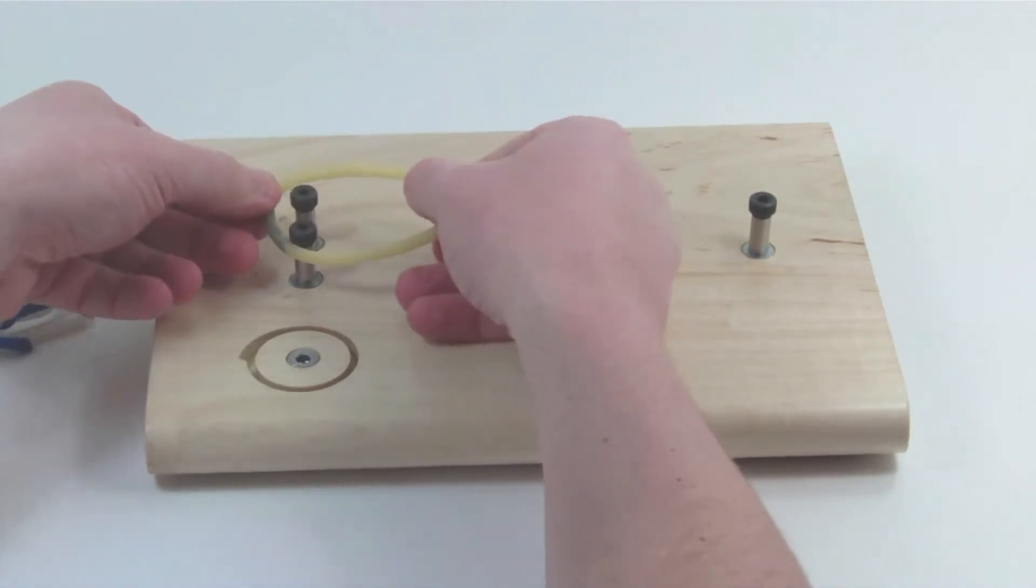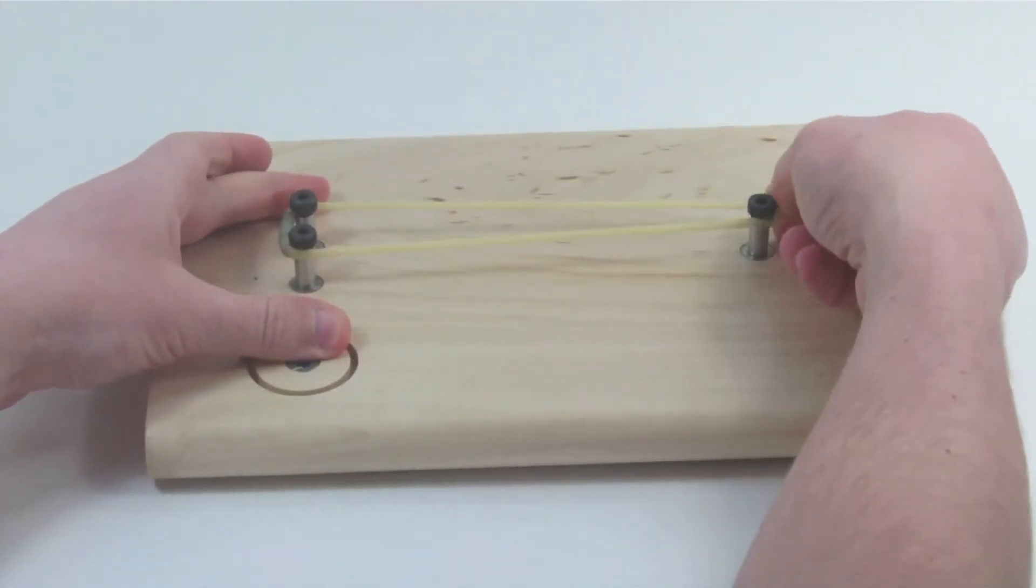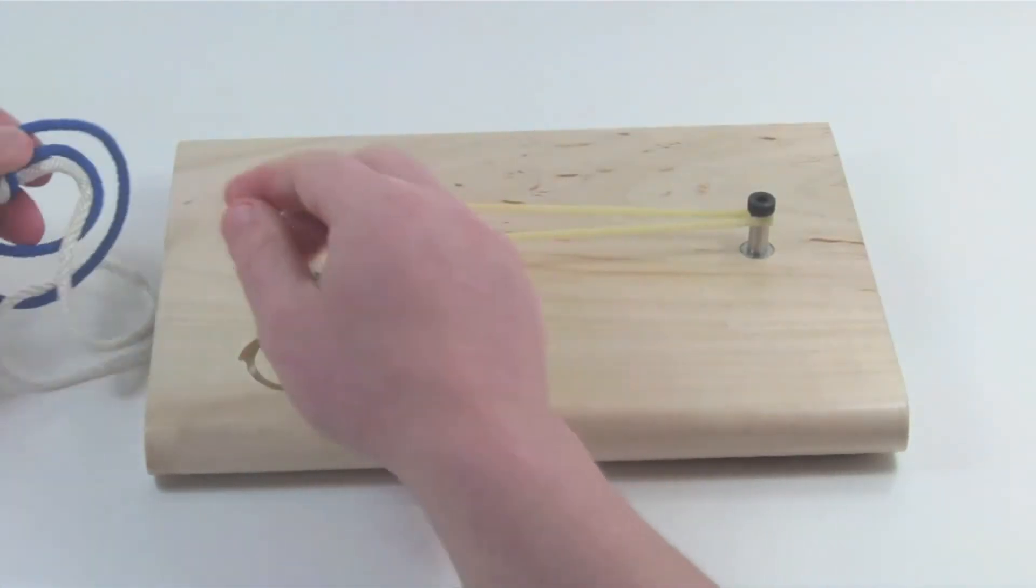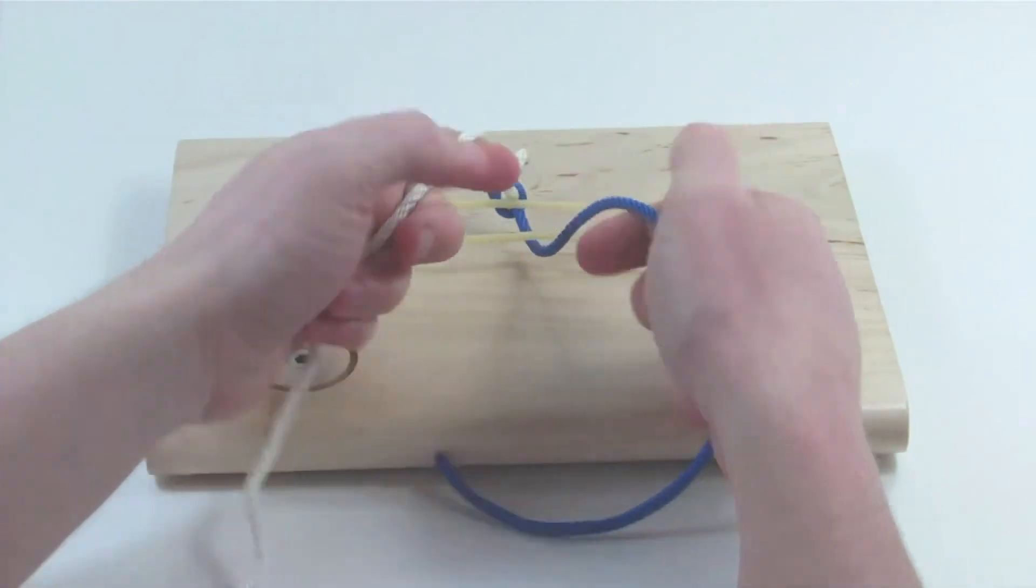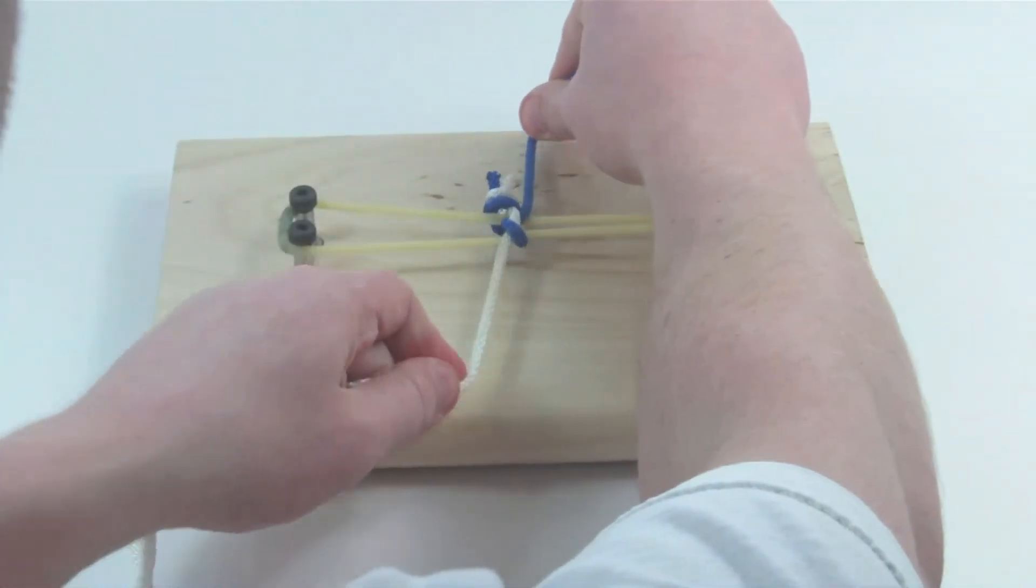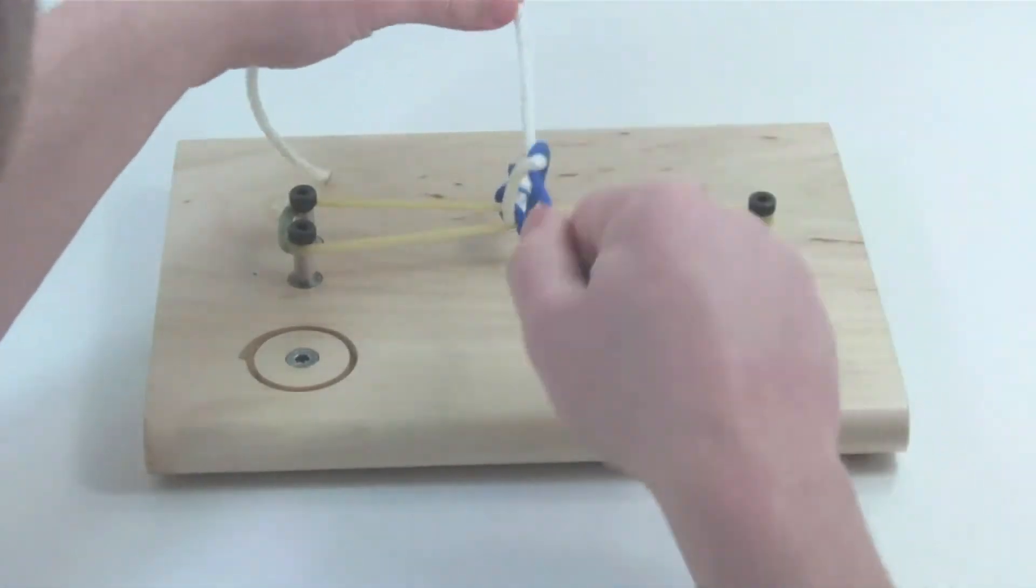The ligation band is placed across the three posts and used for hand ties. A rope is provided combining a blue and white thread to easily visualize a correctly tied knot.